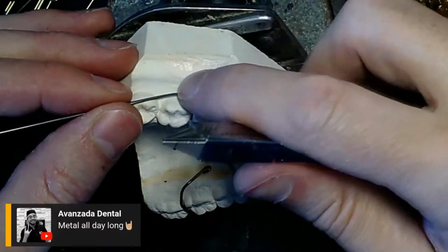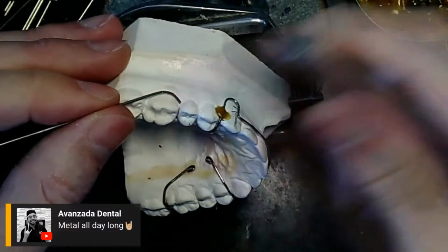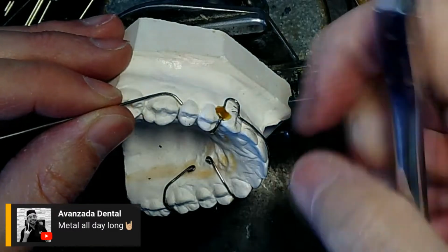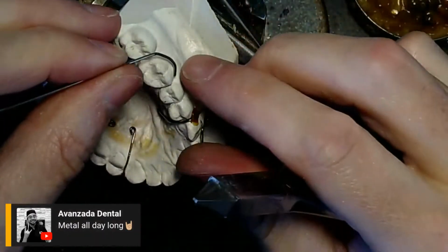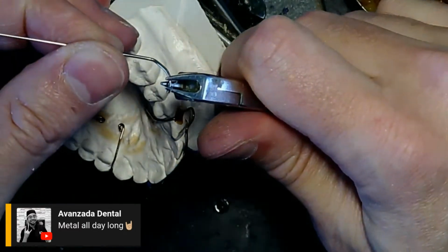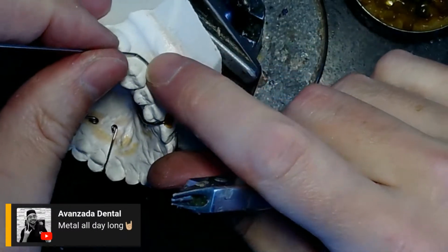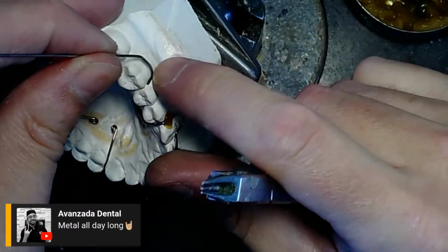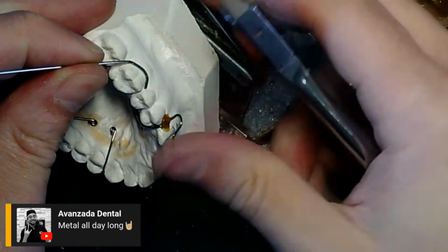But you were actually bending wires, and your model holder was a denture flask. Is that right? It looked like a denture flask. But no judgment on wire bending here, doctor. I think you've set the scale too high for us. But I bet you're definitely one that could pass this exam with flying colors.